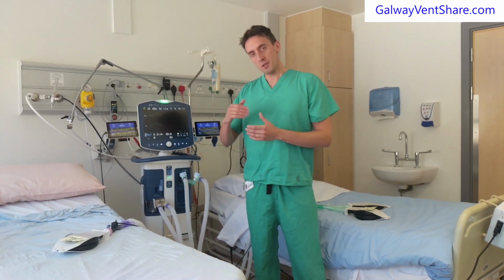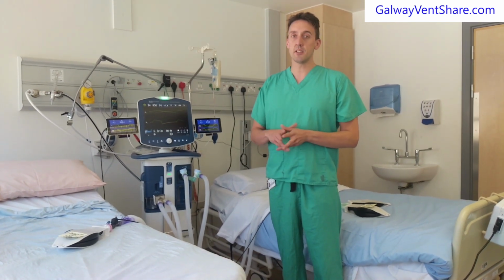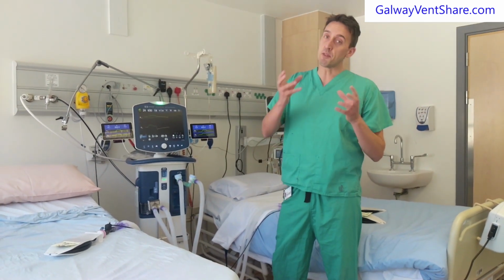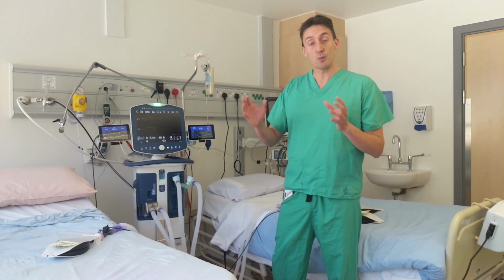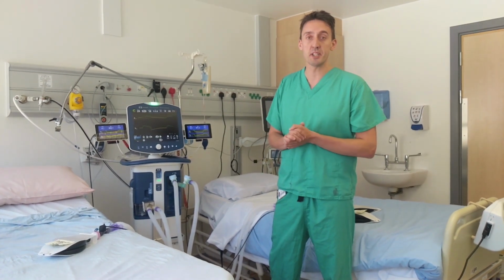The video I'm going to show you today will outline the Galway VentShare system for ventilating 2 patients with 1 ventilatory source. This video represents an update because if you've seen previous versions of this video, we mentioned that we're going to develop patient monitoring in greater depth. We've done that now, and I'm going to show you briefly how it works and show you it in operation.